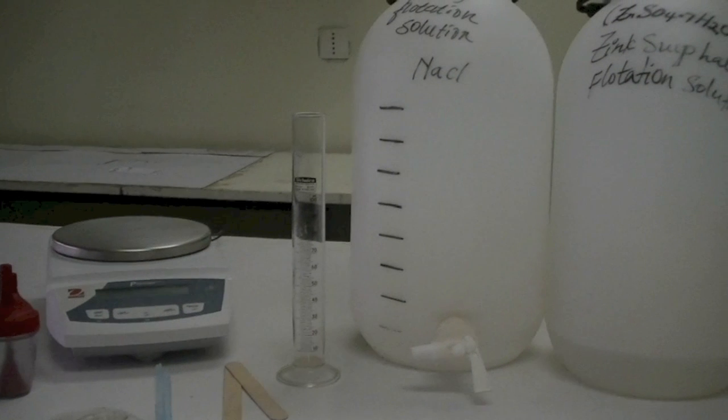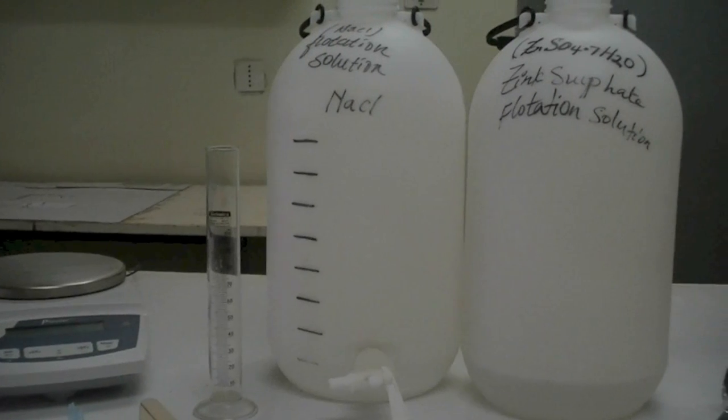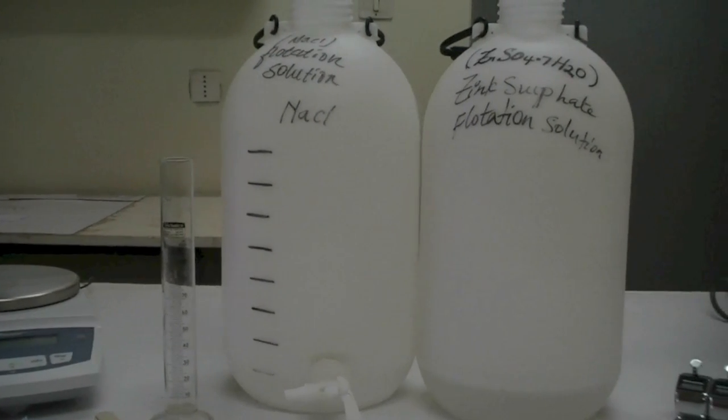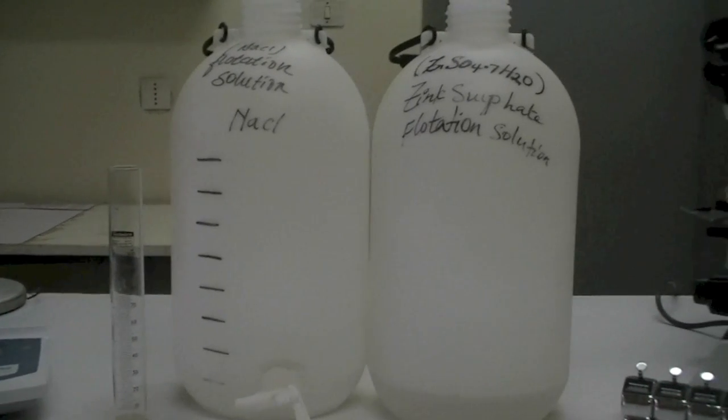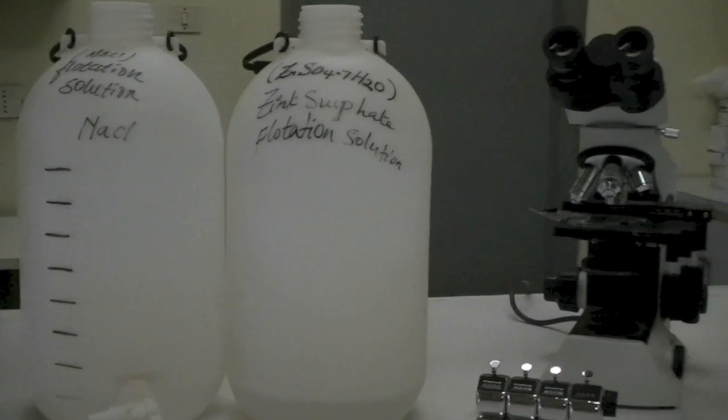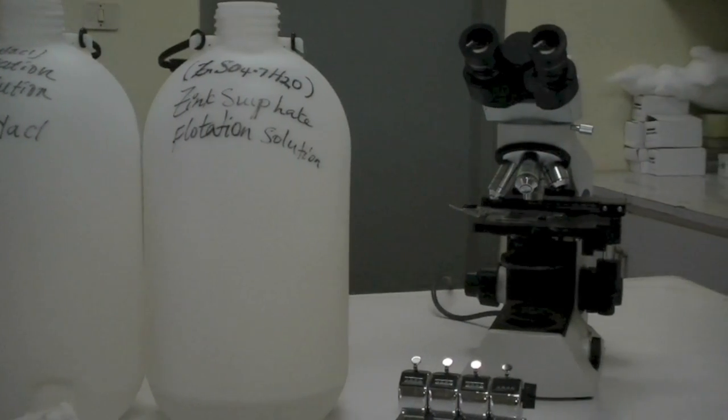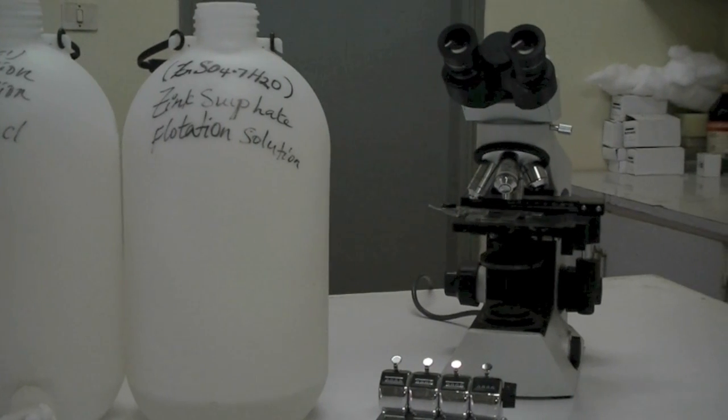Flotation solution with a specific density of 1.2 saturated salt solution for the assessment of soil-transmitted helminthiasis, or with a specific density of 1.35 zinc sulfate solution for the assessment of schistosomiasis, a compound microscope, and a counter.